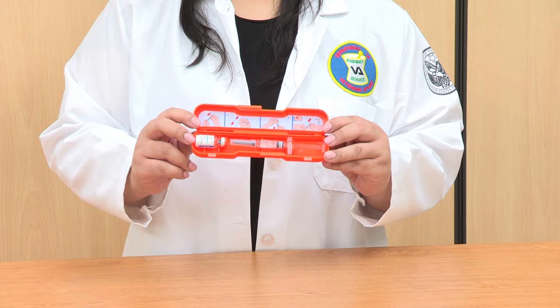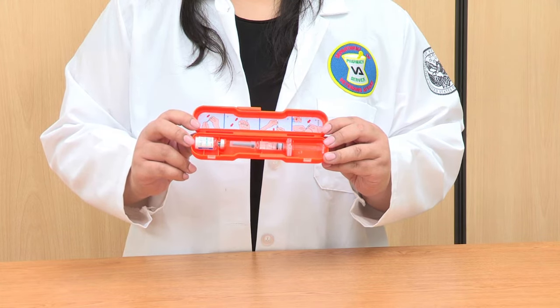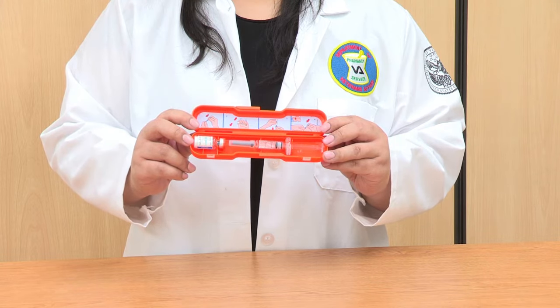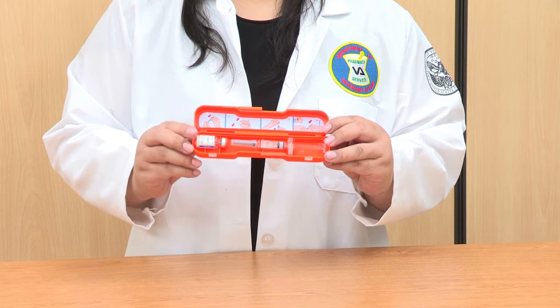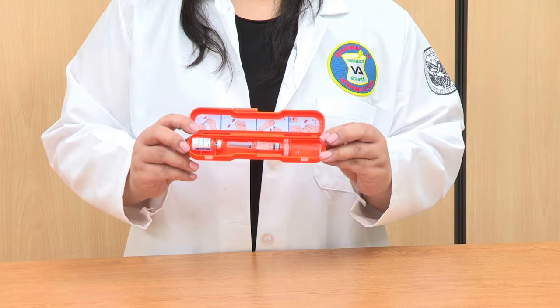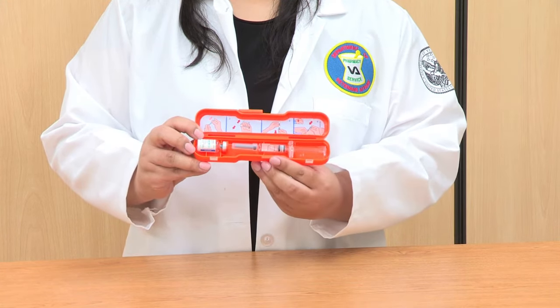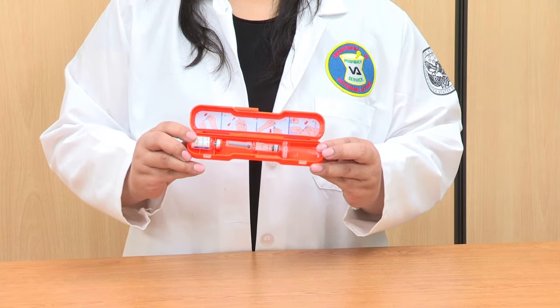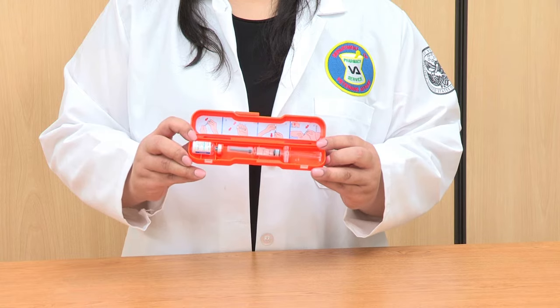There are many glucagon delivery systems available. Today I will show you the glucagon injection emergency kit. The kit contains everything you will need to treat a dangerously low blood sugar. It includes a vial with a dry glucagon powder and a pre-filled syringe with liquid inside to mix with the powder. A needle is already attached to the syringe. You will need to mix the dry glucagon powder with the liquid before giving the injection.